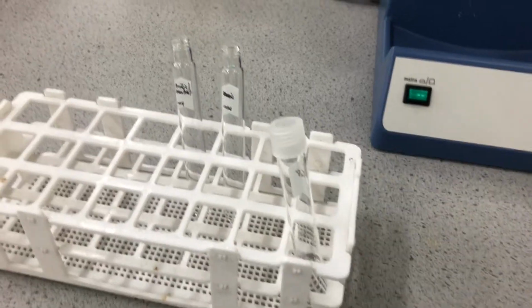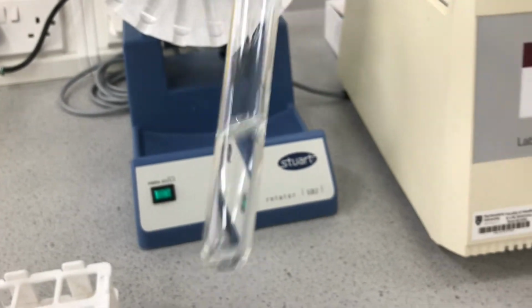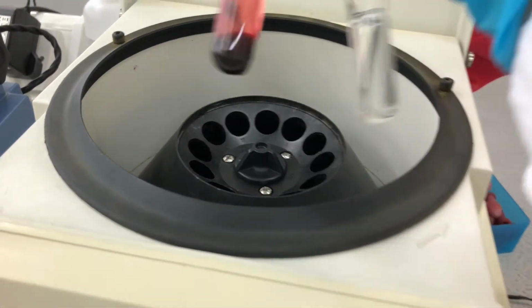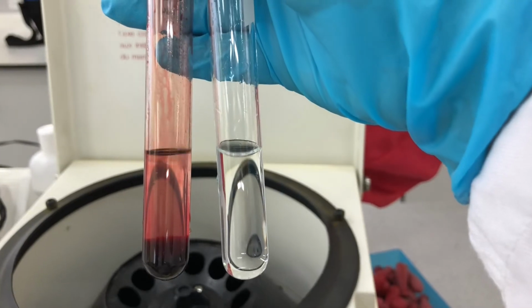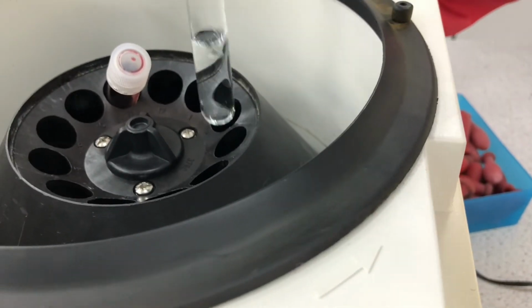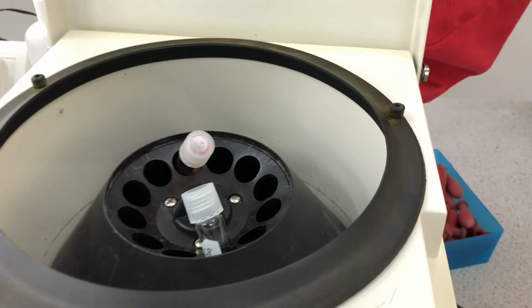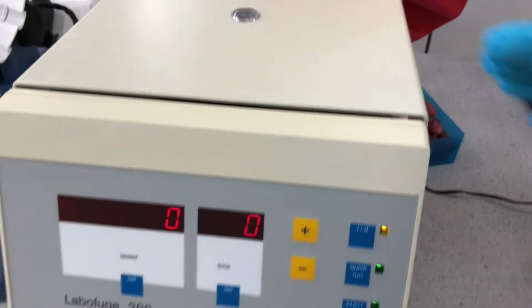We will then also find ourselves a test tube of water which has approximately the same volume of liquid as is found in your test tube with the sample. And the reason that we do that is to make sure that our centrifuge is balanced. You will also note that I'm counting 6 spaces, so again that the samples are opposite each other and again that the centrifuge is balanced.